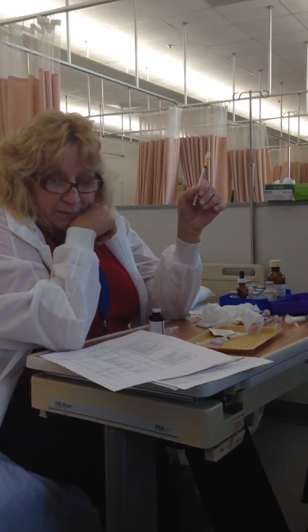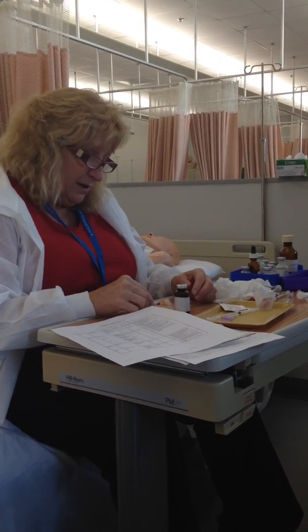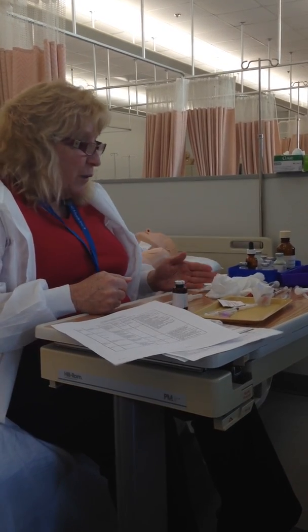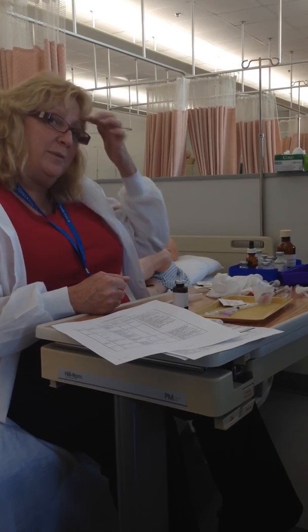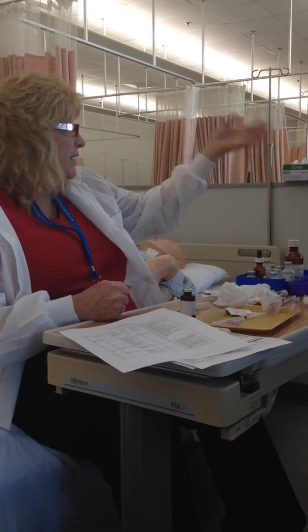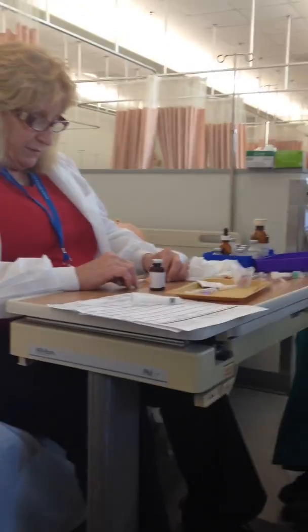Then you get into the IMs. The IMs start at, think of the legal drinking age, 21. 20 to 23. Okay, so that'll help you to remember that. If we go over there and I tell you to select needles and you've got it in your mind that you want a 23, and we don't have any, you're going to have to use a 21. You have to use what we have. Sullivan stocks it, but we don't always have everything that we need there, depending on what comes from medical.